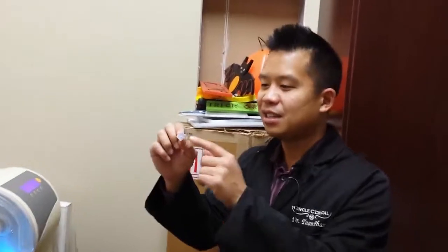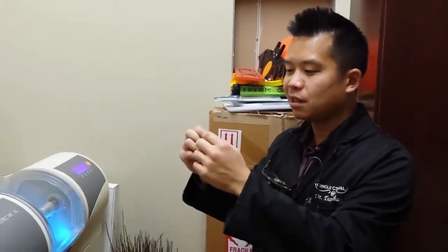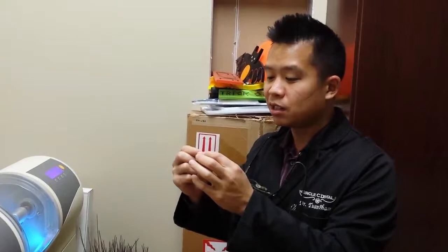And then, you see this thing? Yes. This is a solid block of porcelain. It's purple, and the porcelain is called lithium disilicate.